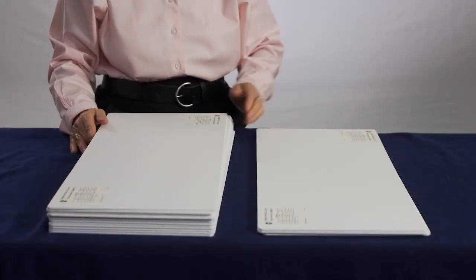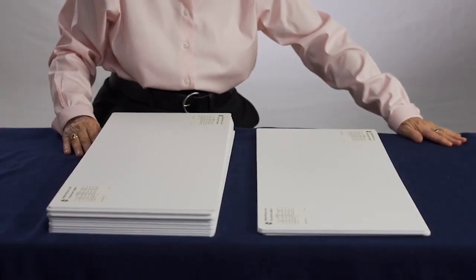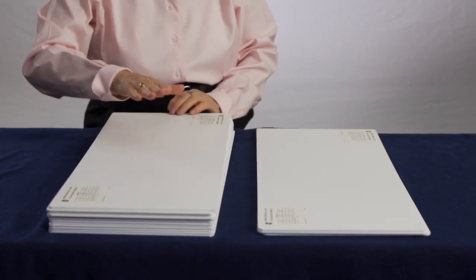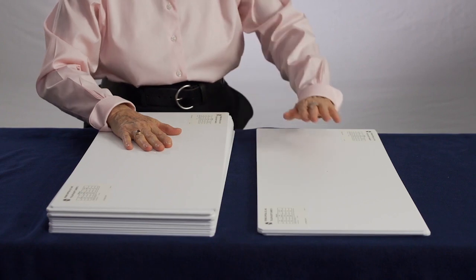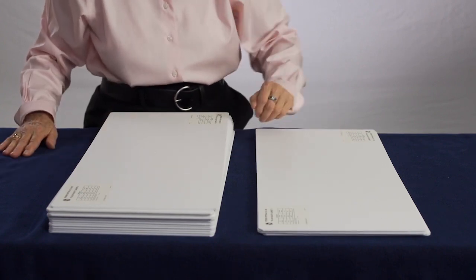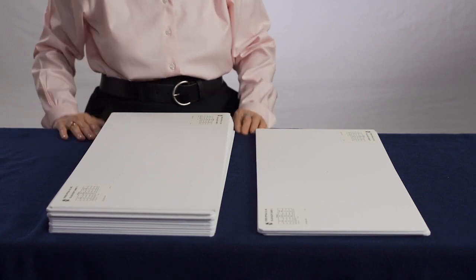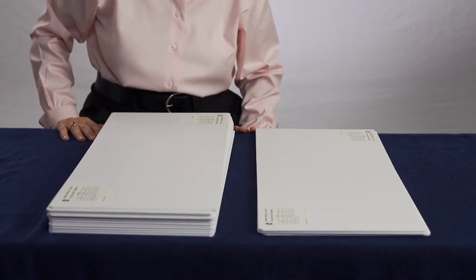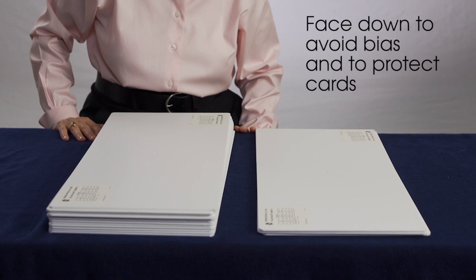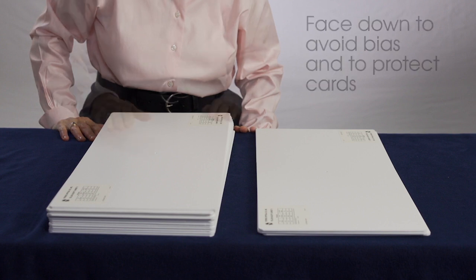Set up the cards in 2 stacks with the grating face down on a soft, clean surface. The card labels are up. One stack is for gratings the patient has not seen or will not be tested on, and the other stack is for cards the patient has seen or are larger than need to be presented. Stacking the cards with the grating face down keeps the examiner unaware of the position of the grating before testing. It also minimizes damage to the grating face of the card. Papers can be inserted between each card in order to minimize marks or blemishes.